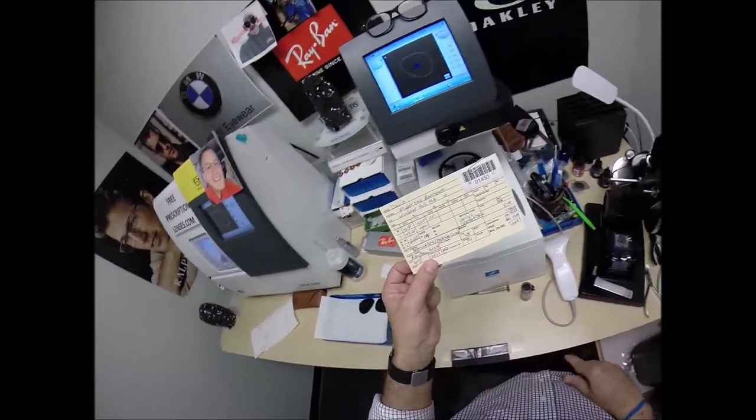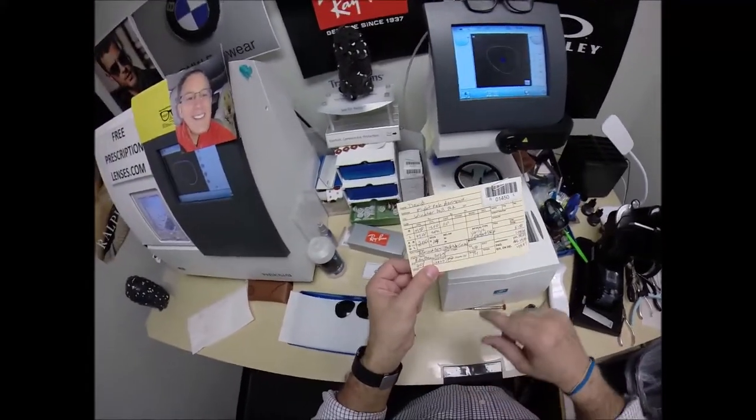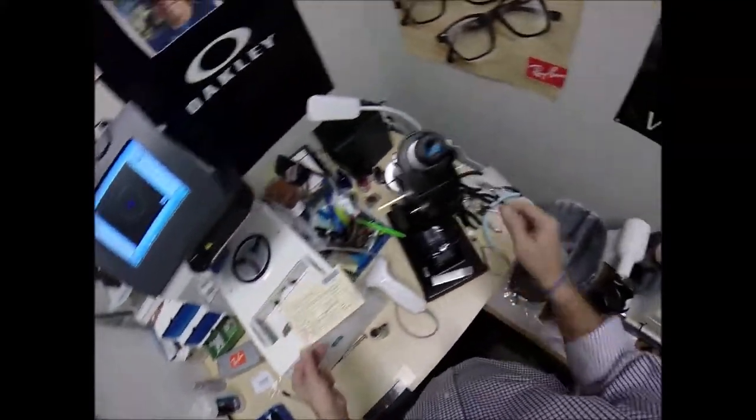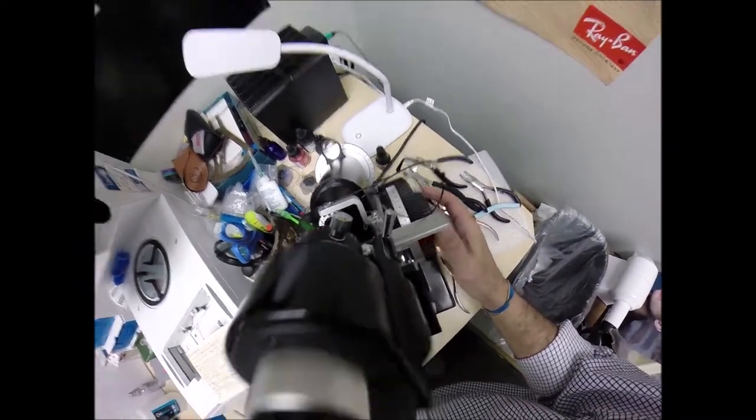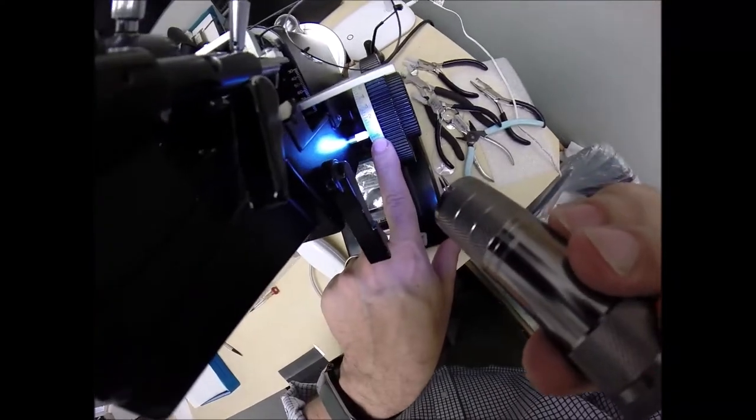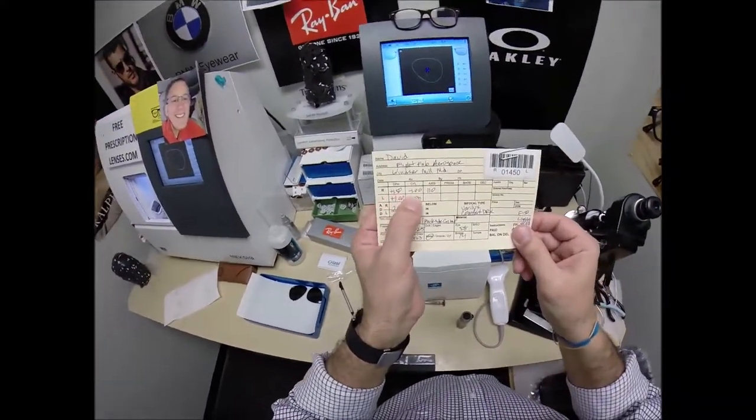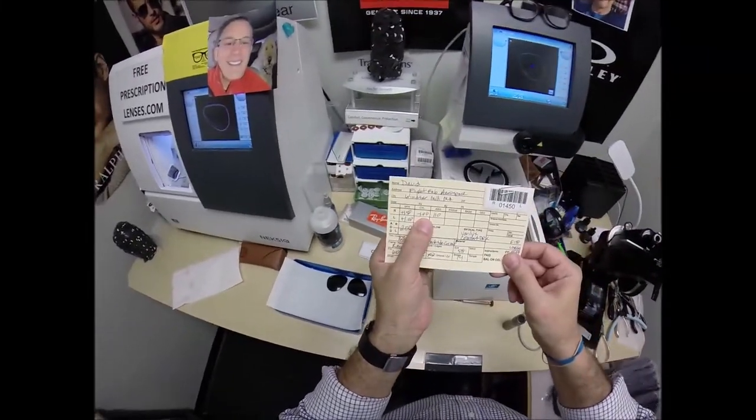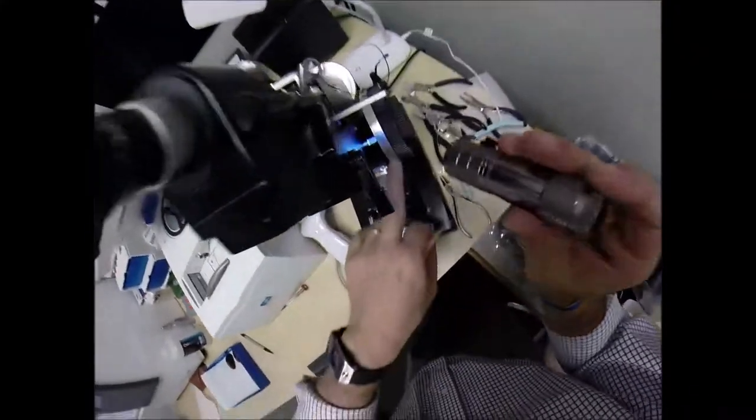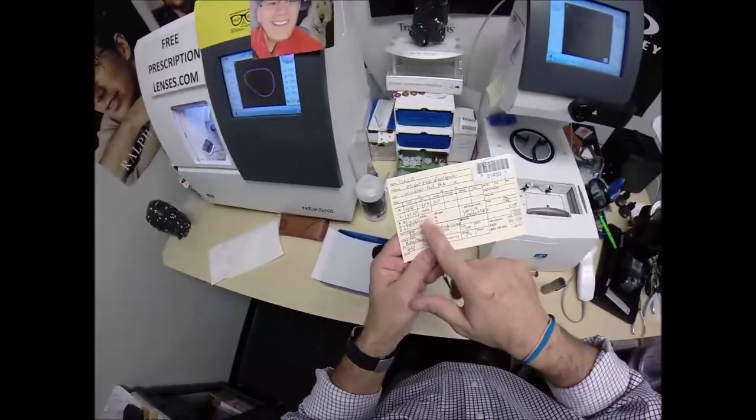However, if you're right eye dominant you need that in there. And we're going to check that at the 110 meridian which we're already at. Check that and we end up at plus 50. Exactly halfway between zero and one. How did we get there? If you started out with a dollar fifty and someone borrowed a dollar from you you would end up with fifty cents in the black and that's where we're at. Say that reminds me Dave let me hold a dollar.